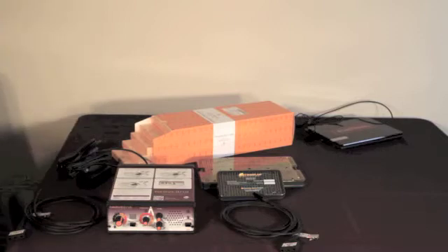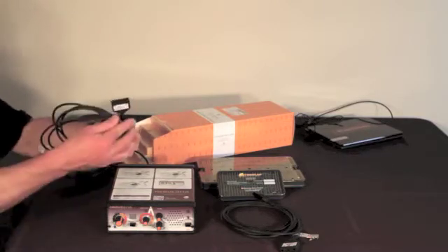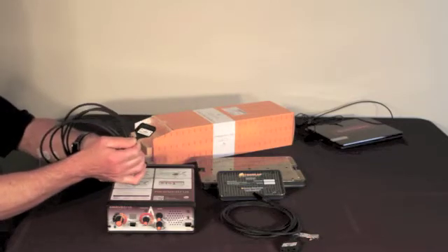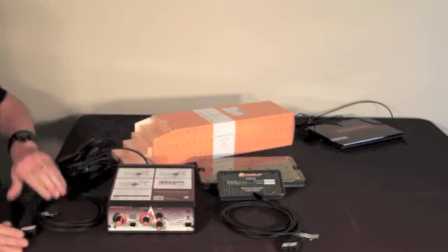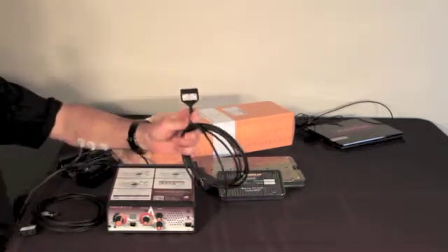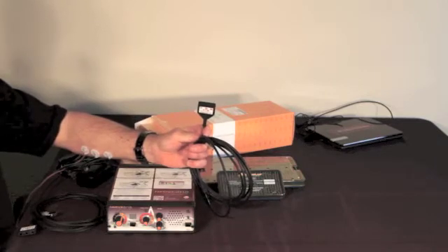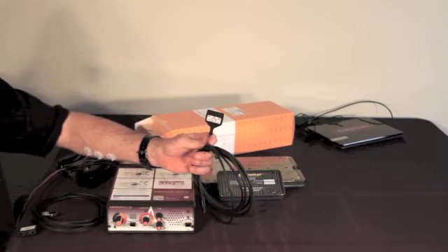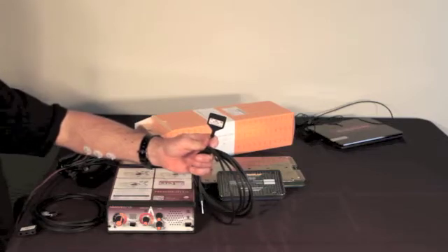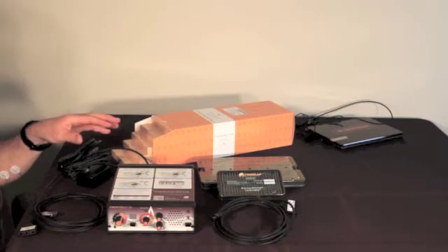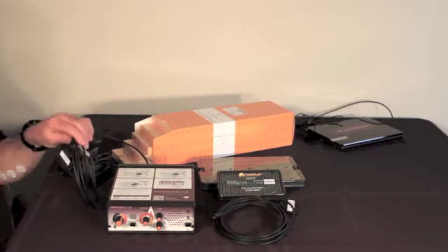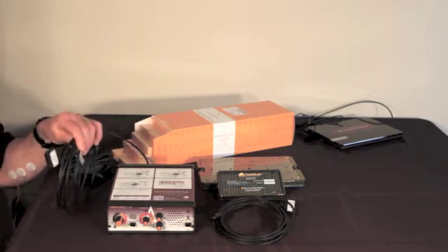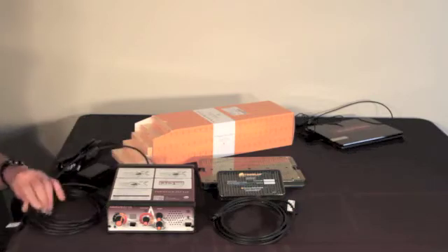Every surgery kit setup is going to involve placing monitoring electrodes on the patient and connecting to this EMG cable using color coded ports. And then after that setting up a stimulator cable with leads coming off the sterile field with a lead coming off the sterile field that goes to a stimulator probe that's used by the surgeon. We always begin this second step in the process with the EMG side. That's what we want to be thinking about. What muscles are we monitoring right now?